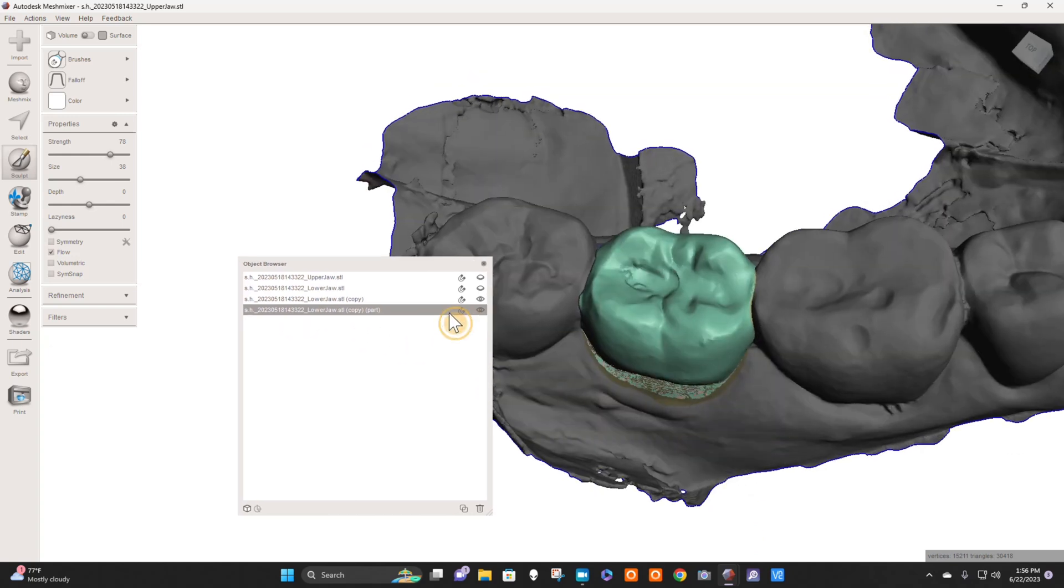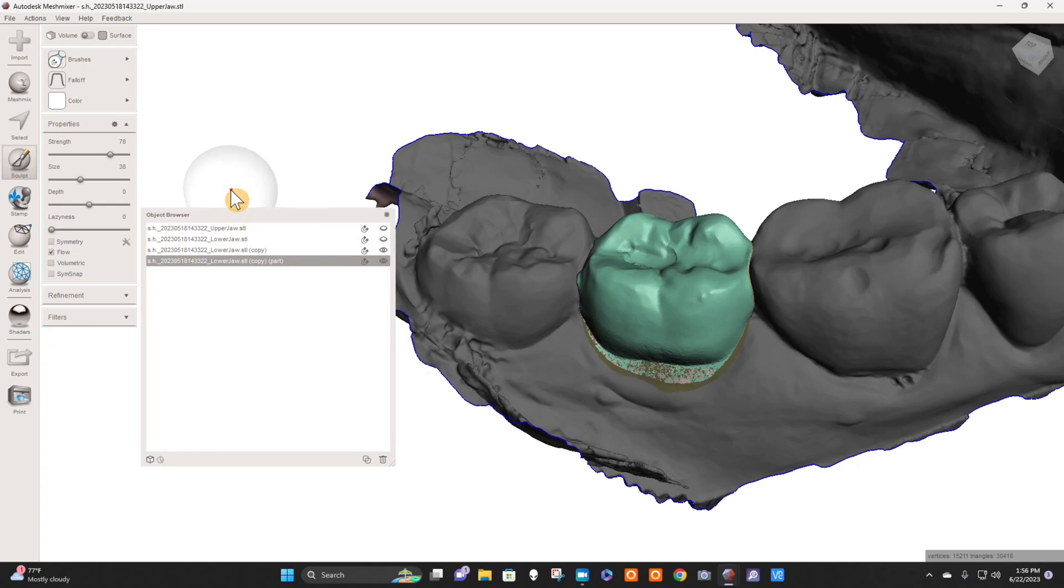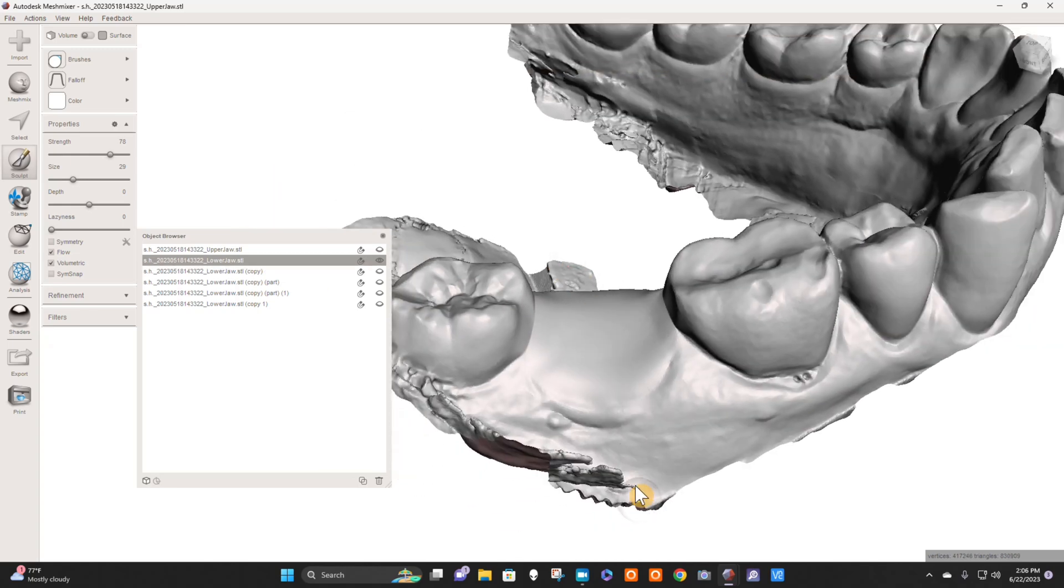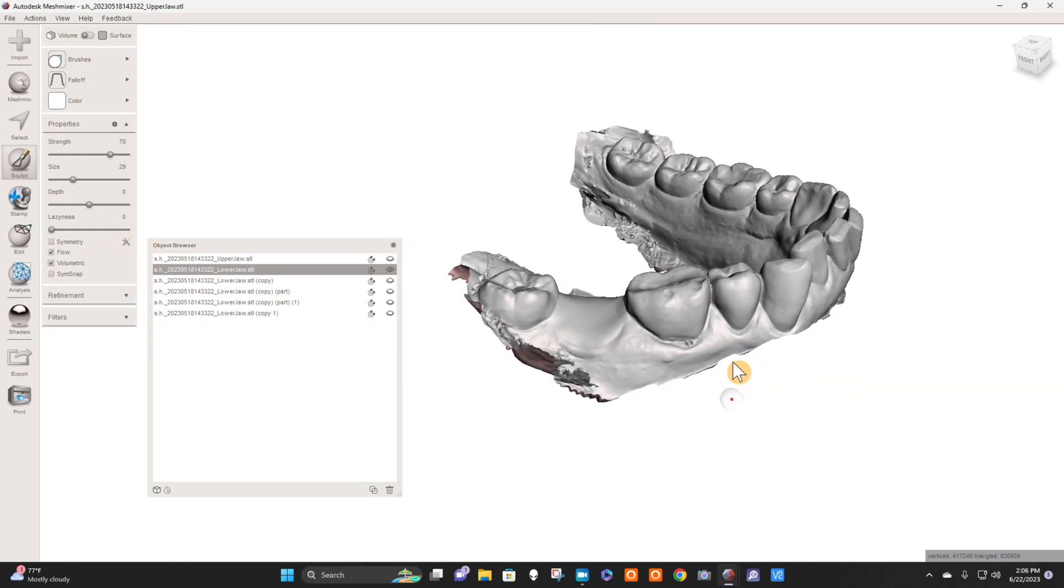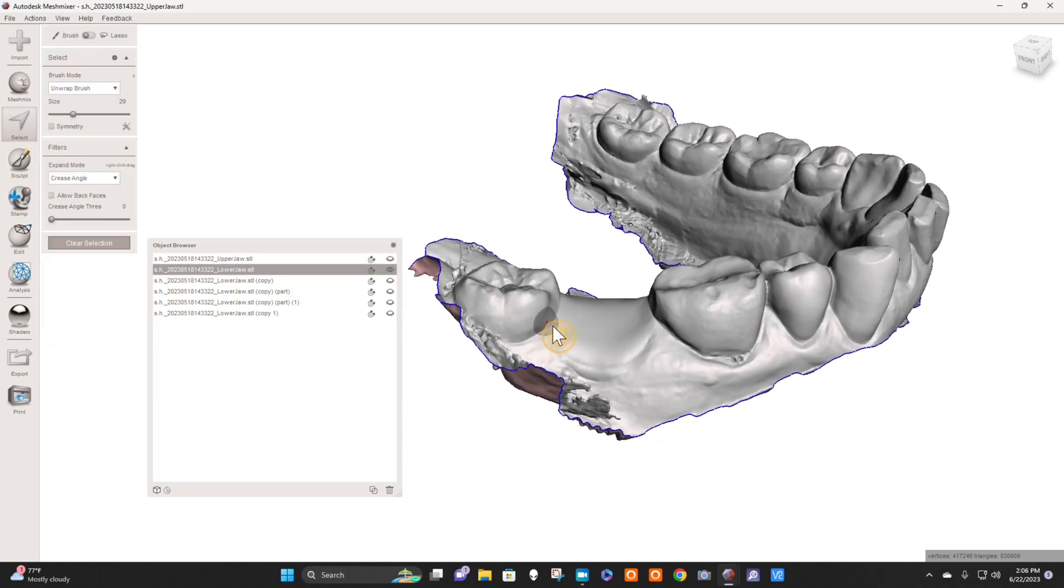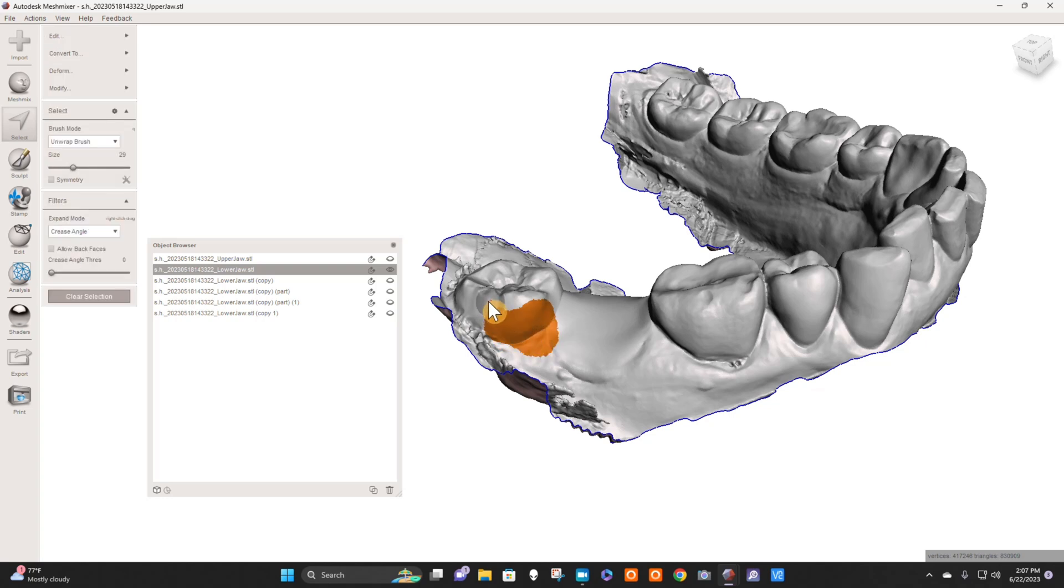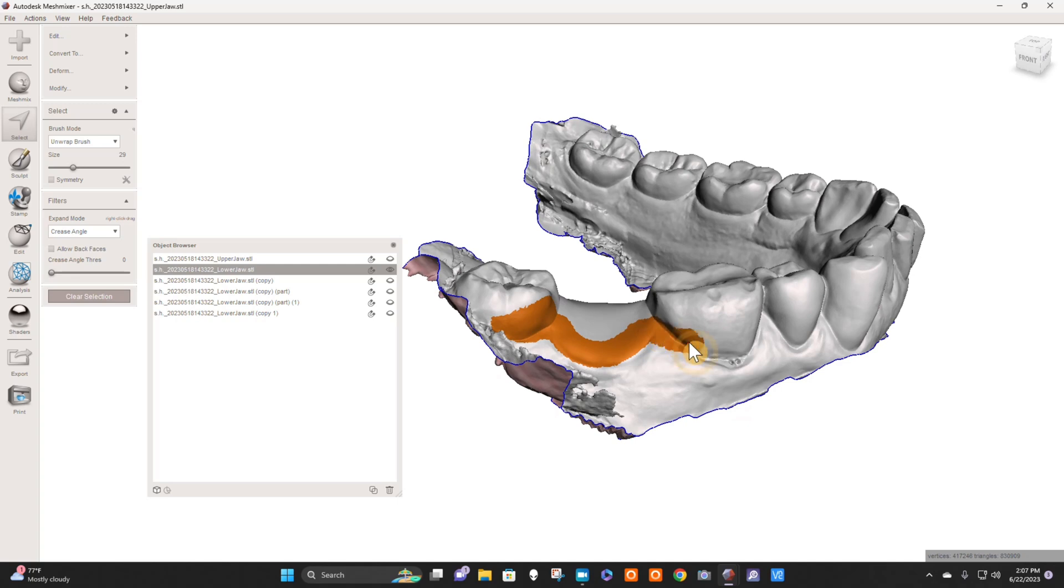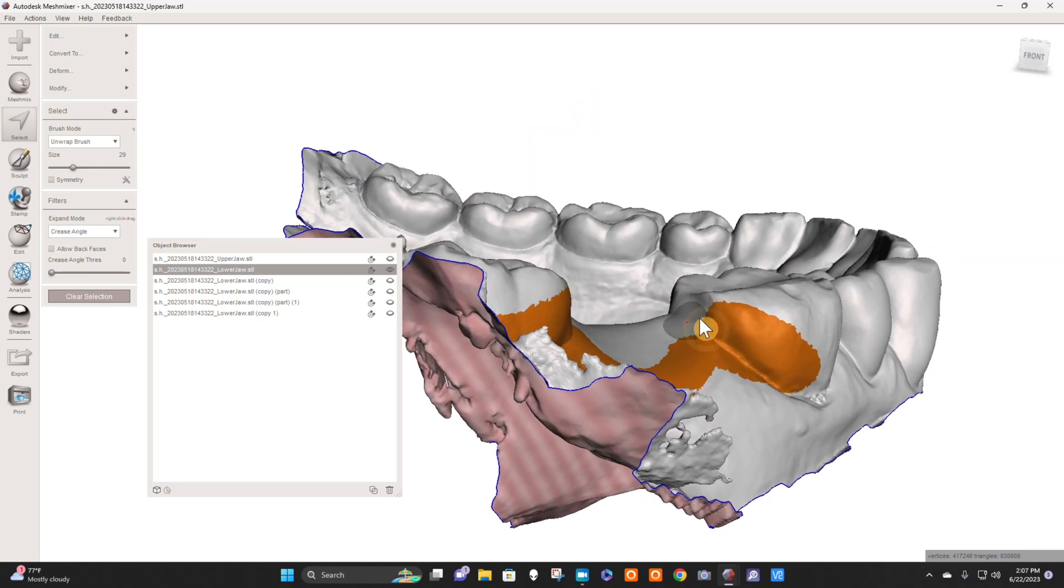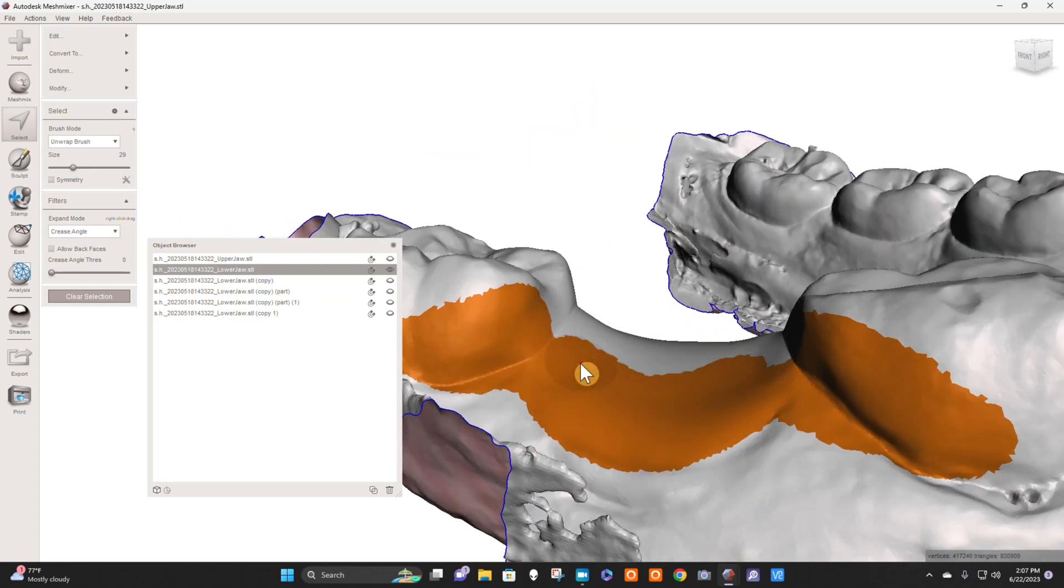Okay, so next step now is to create our major connector and clasps. So there's two or three different ways to do that. One way, the way that I like to do this, is a little different than I think what most people would do. I would go to my Select tool here, and if you remember, printed RPDs have a shark fin type clasps. It's fat here at the area where it connects to the major connector, like little shark fins like that, and it'll come down to a little connector here, and then we'll go into another shark fin. The point is that where it's fat, never really super pointy like a metal clasp. And fat and really tall here and close a little gingivally at the base.